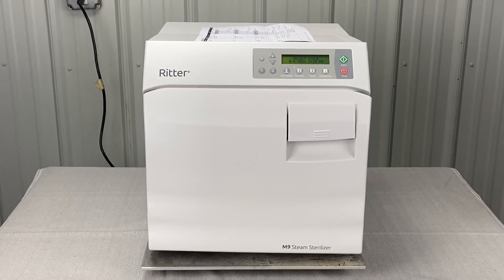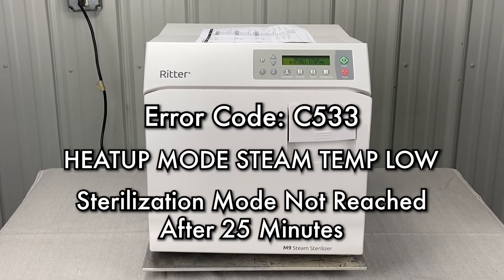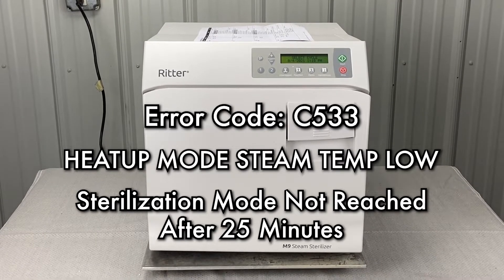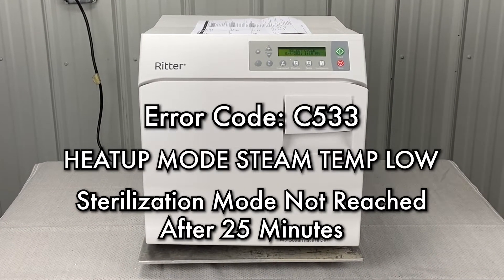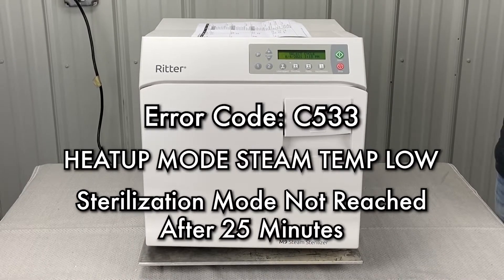We're going to talk about the Charlie 533 error code. 533 is a heat-up mode error — steam temp low — meaning sterilization mode was not reached after 25 minutes.